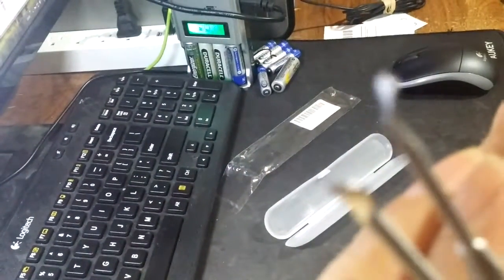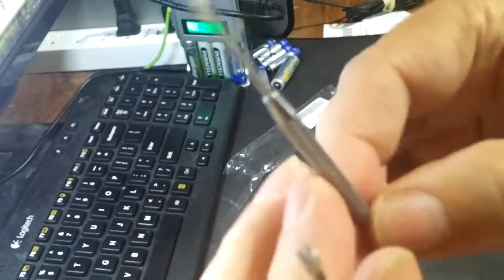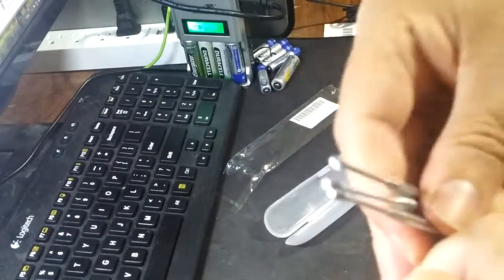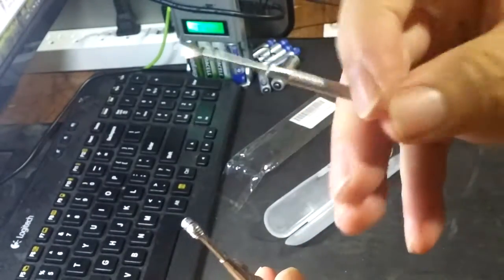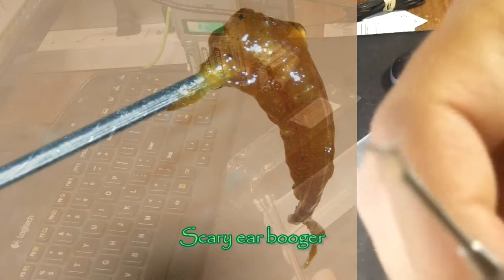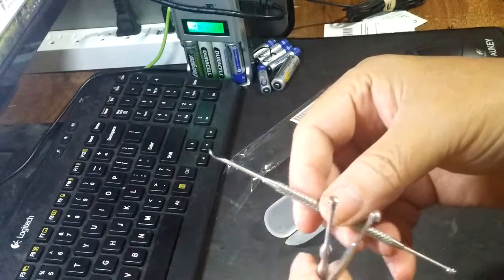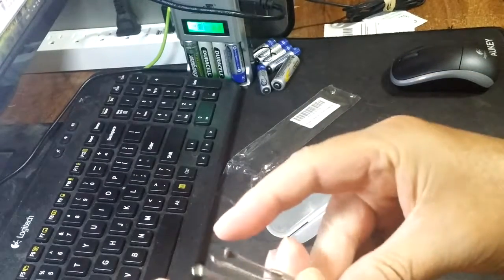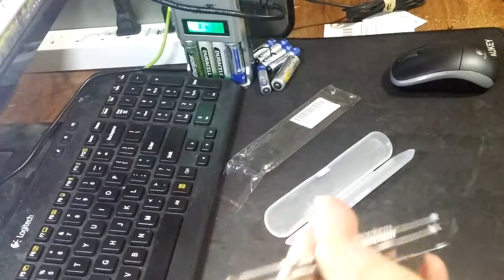I've got these nice little shovels. I need to just carefully reach in there and out it goes. Pick up other debris at the close end of the inner ear, and dredge out the really clingy stuff back there in the back. Stainless steel, so cleaning and sanitation is not a problem.